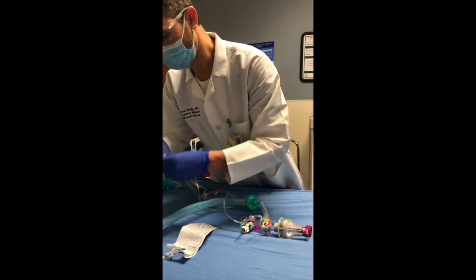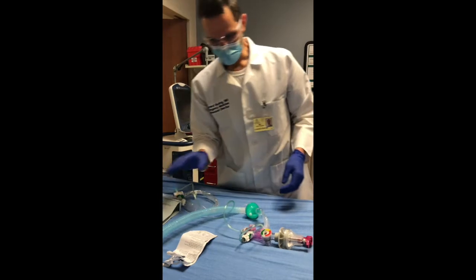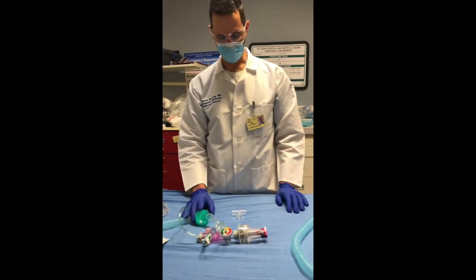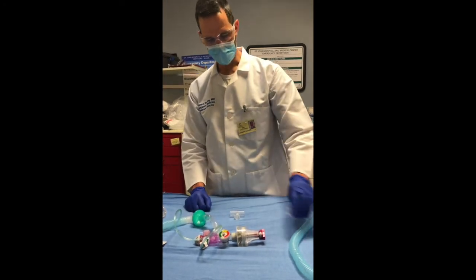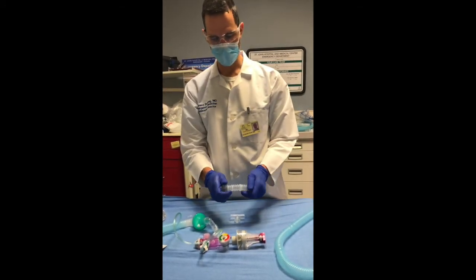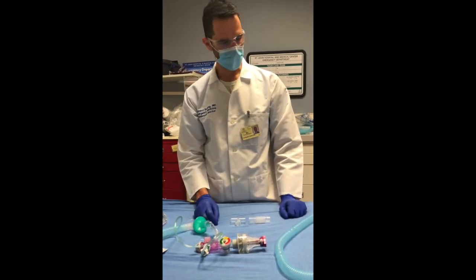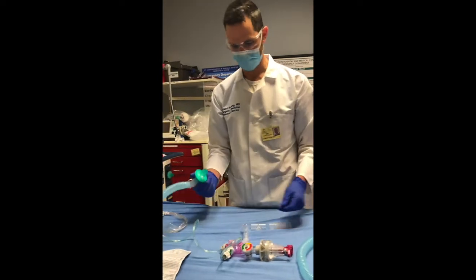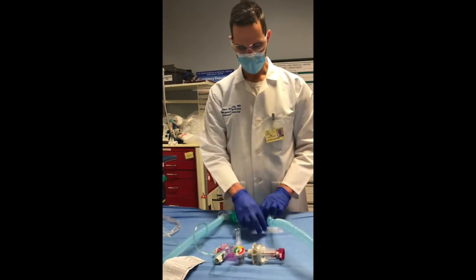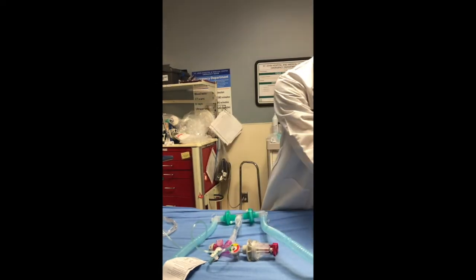For surge capacity, if you want to ventilate two patients with this one device, you just need a T-piece — which your respiratory therapists hopefully have — and a connector. You can use regular corrugated tubing, just cut a piece of it. We also like these corrugated tubes that come off a nebulizer treatment; they're a little bit less compliant and slightly stiffer. To make a two-patient connection, you're going to disconnect your one-patient connection from your Vortran, hook both patients to your T-piece, then connect one end of your T-piece to your Vortran and make the final connection to your ET tube on the other side.